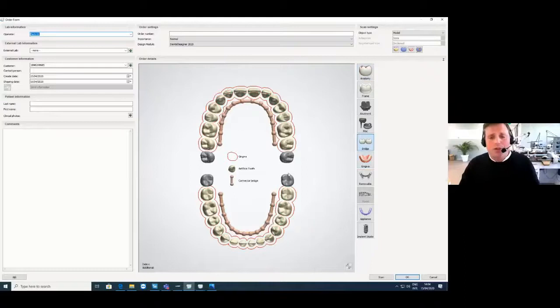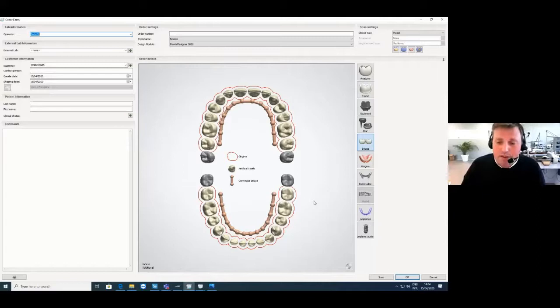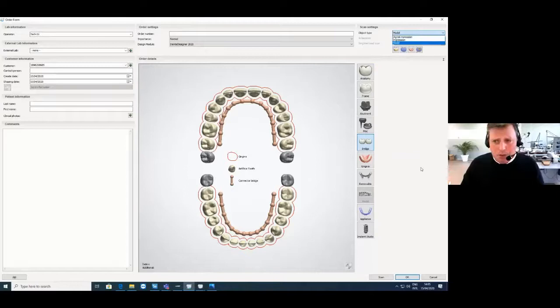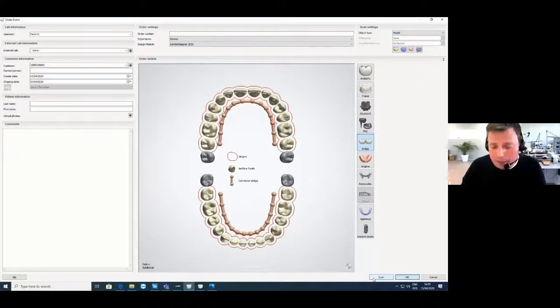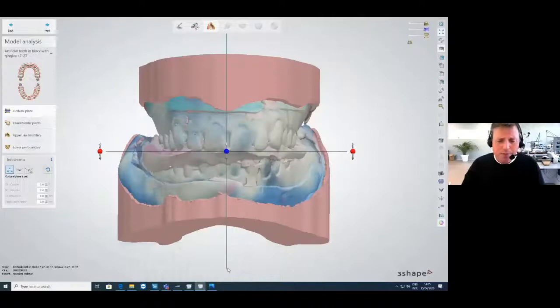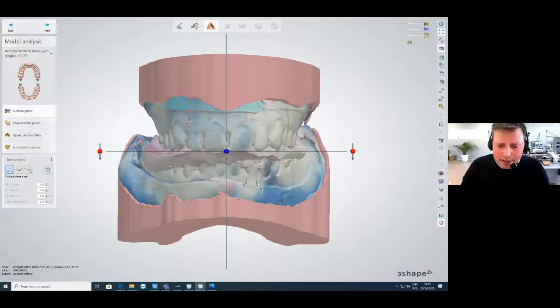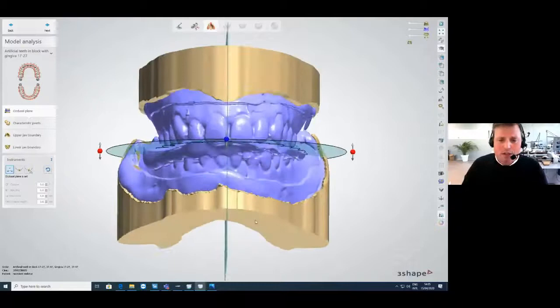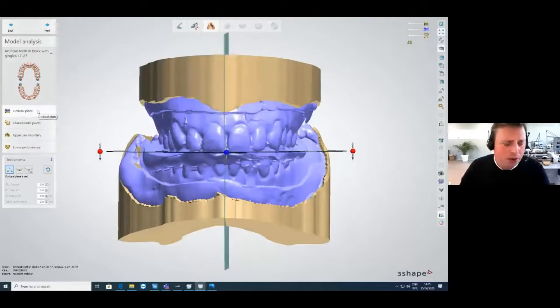Select 'bridge' so all teeth will be connected as one unit, allowing you to freely morph all the teeth. You can set what you will scan — model, impression, or digital impression. Normally you press the scan button and go directly into your scanning program. Once scanned, you can import your scan and add it to your order. When opening the software to design, you'll see the colors from texture scanning. I toggle this off and set chromatic colors, which works easier for me.